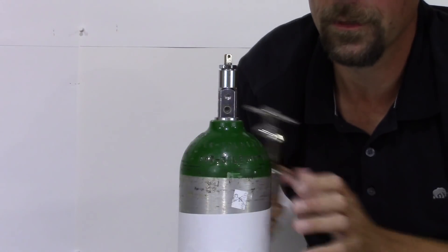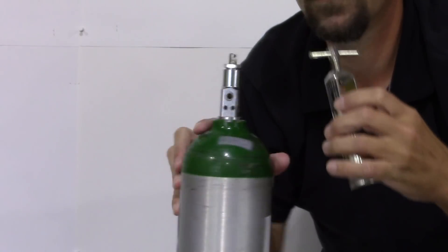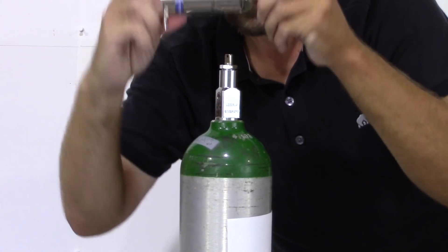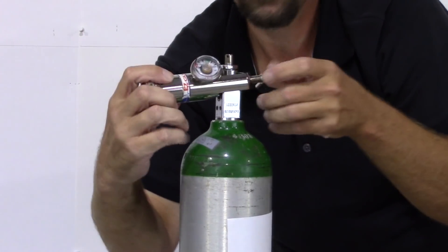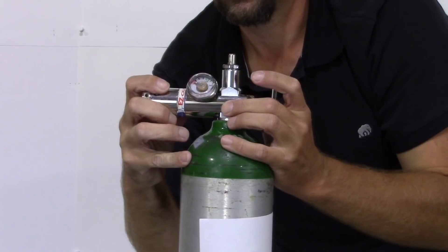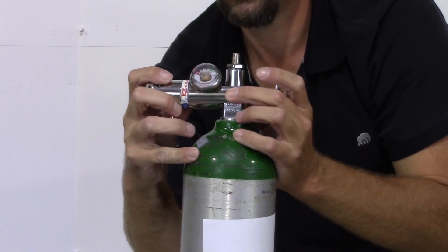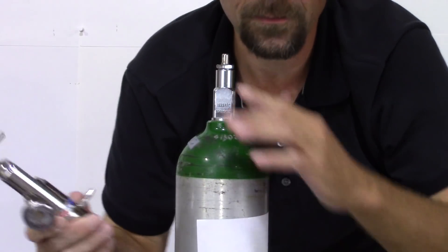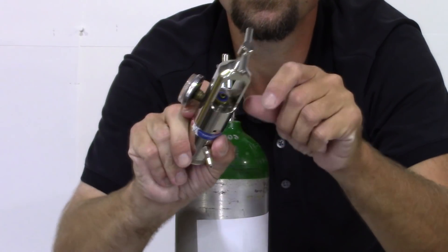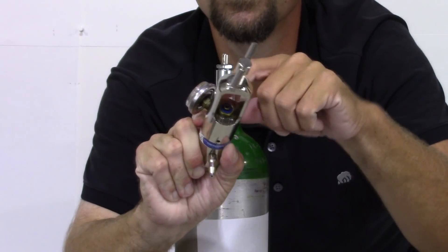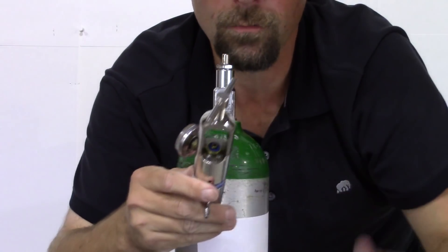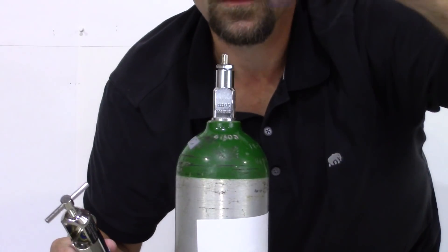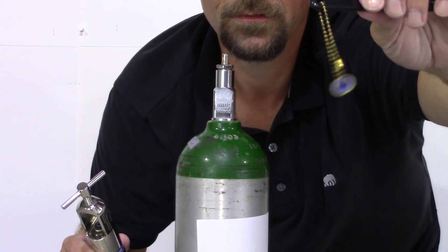Let's put this bad boy on. It's easier if I can put it so you can see it. Excuse me. Drop this on. Now, as I bring it back up, you're going to feel that go on. But let me say, before we do put this on and get this started, there's a little—excuse me, not green—it's a blue and gold washer right there in the middle. You can kind of see it there. It's also on my wrench. See those on the end.